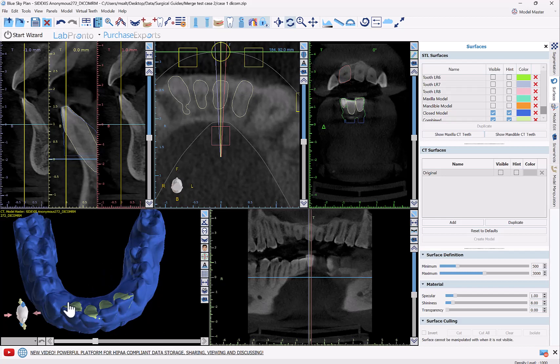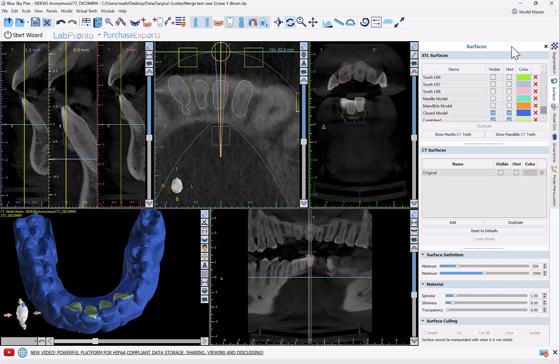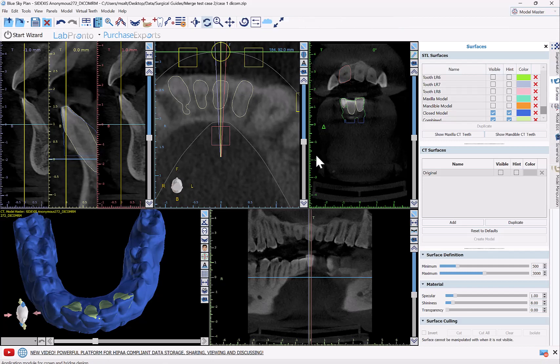However, if we turn off the CT scan and look at just the segmented teeth and the models, if we were to subtract the segmented teeth from the model, we would still be left with a little bit of an outside shell of those lower anterior teeth. So what I suggest is: first, we're going to switch over to the Crown and Bridge functionality, because that is where our boolean functionality is in the software.